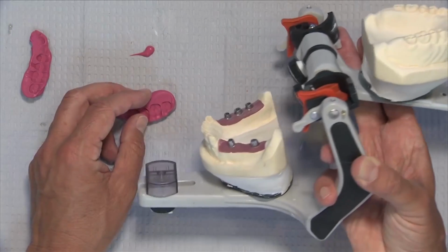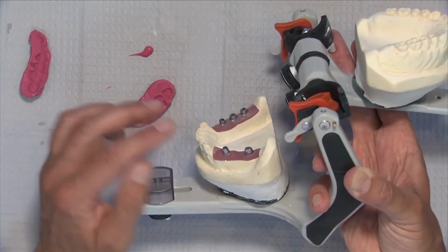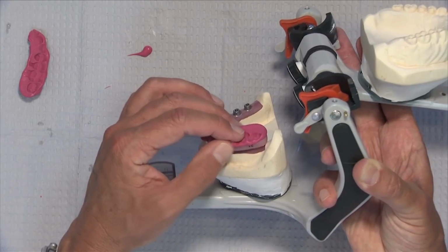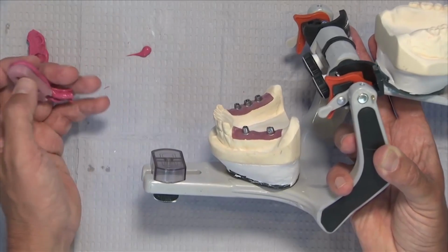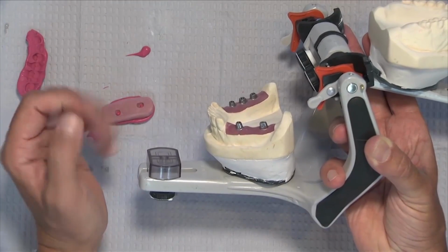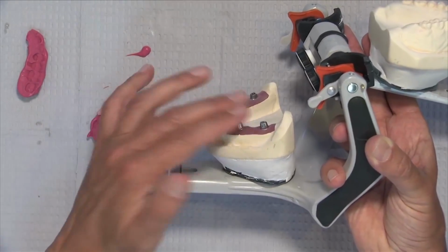And again, if you don't use custom abutments and you're doing this with a solid abutment or a stock abutment, an abutment replica, or what we sometimes in the lab call a single stage abutment, you can still do something like this. You'll just need to fashion a jig like this in your office to be able to get a stable platform here to put some bite registration on the other side and have the patient close down into. But again, I'm not saying this because I'm at the laboratory, but I just like custom abutments because I want my laboratory technicians designing abutments with the ideal amount of draw, with the ideal taper, and the ideal amount of support for whatever permanent bridge, like a Bruxer bridge, is going to go in a spot like this.